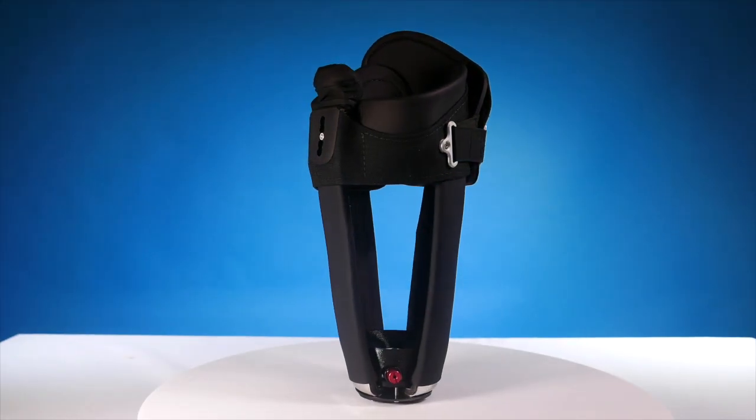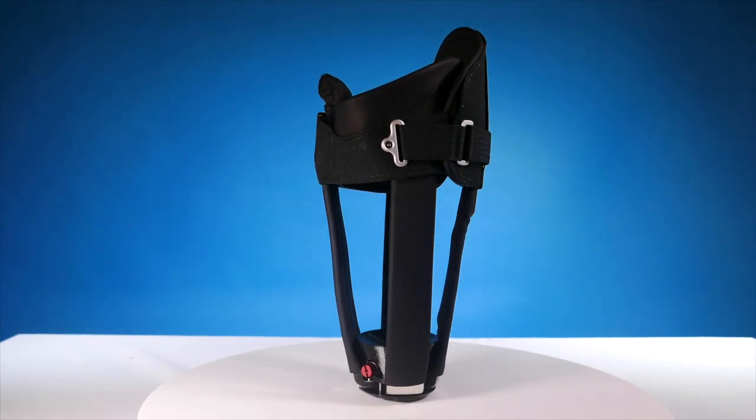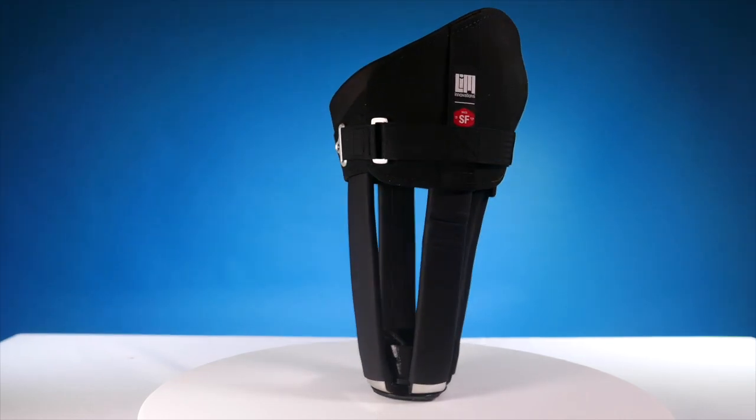Once your contouring is complete, reinstall the strut into the infinite socket frame and your heat adjustment is complete.